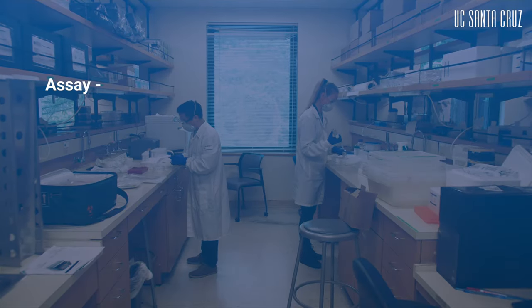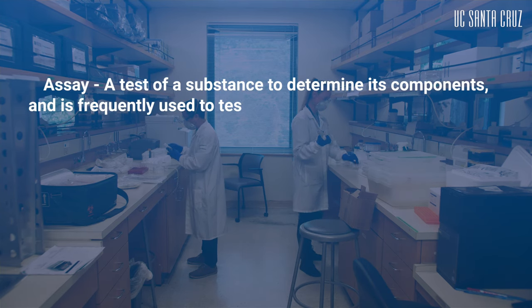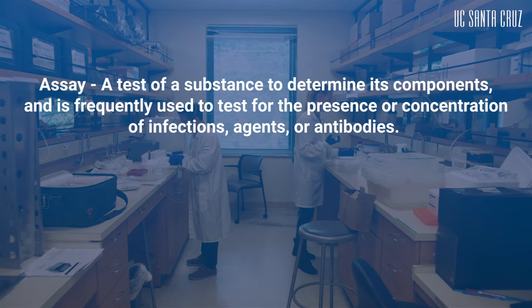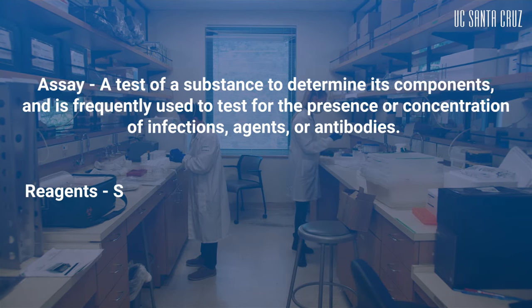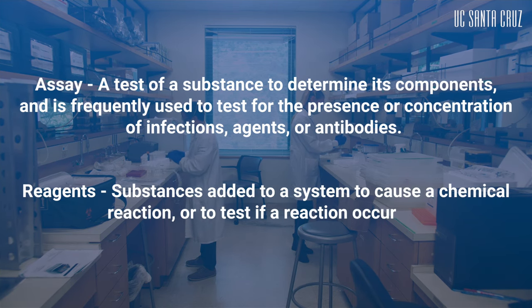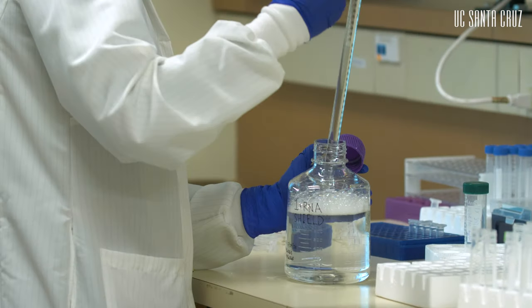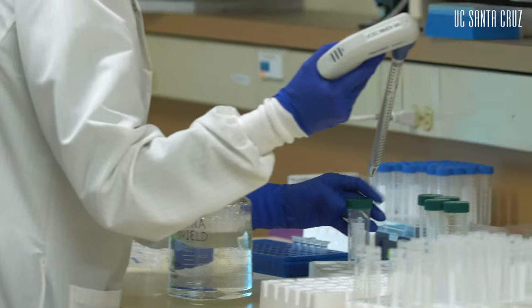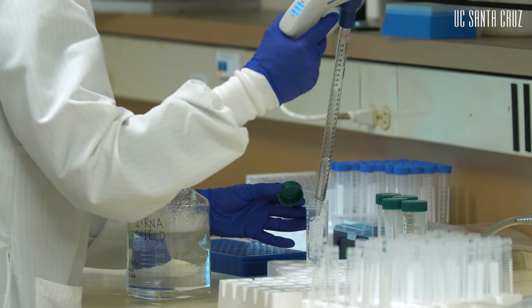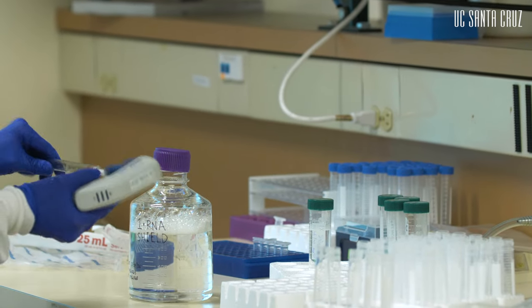An assay is a test of a substance to determine its components, and it is frequently used to test for the presence or concentration of infectious agents. Reagents are substances added to a system to cause a chemical reaction or to test if a reaction occurred. Through rapid innovations, the MDL has been able to move from the manual process shown to scale testing and return results within 24 to 48 hours without sacrificing sample integrity or quality.